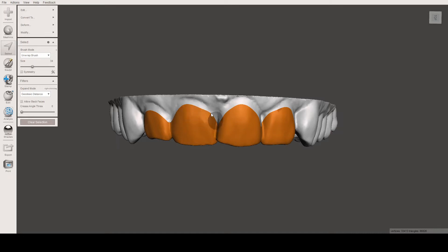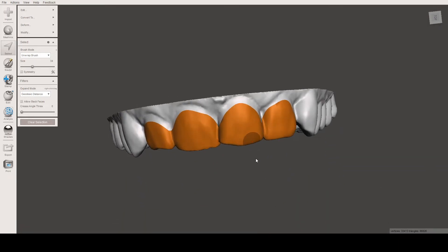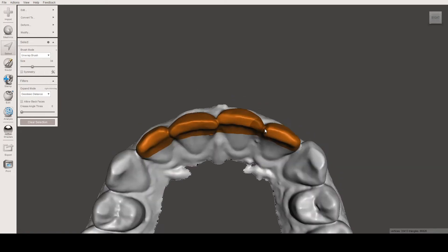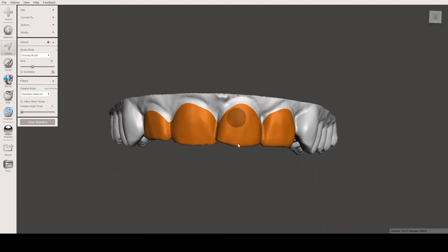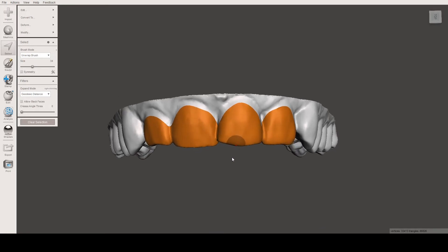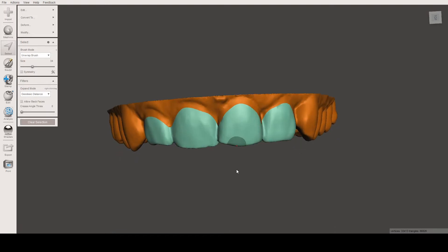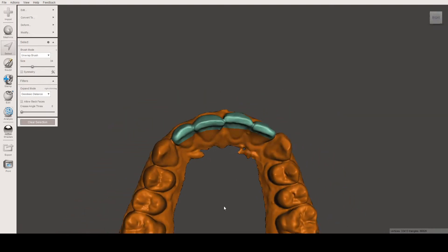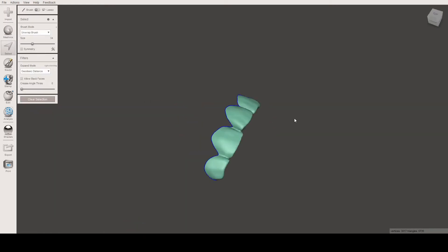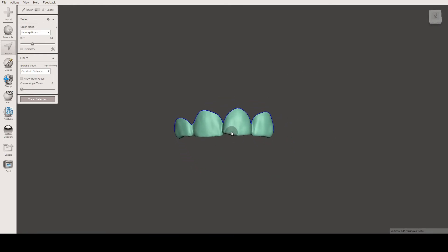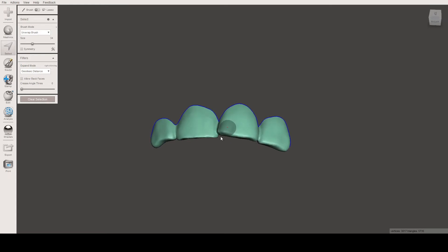Now, after highlighting the area and making the borders smooth, we want to create the shell. To do so, we need to select everything other than the area we previously selected — basically inverting the selection. We press Shift+I to invert the selection, so everything else is selected. Then we press Delete on the keyboard, and now we have our shell very simply.